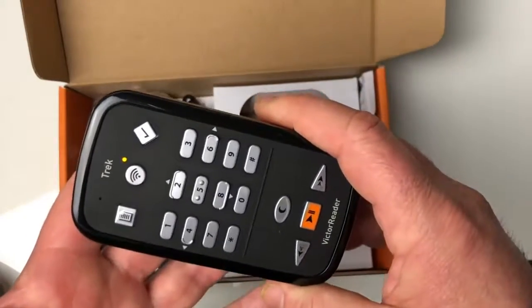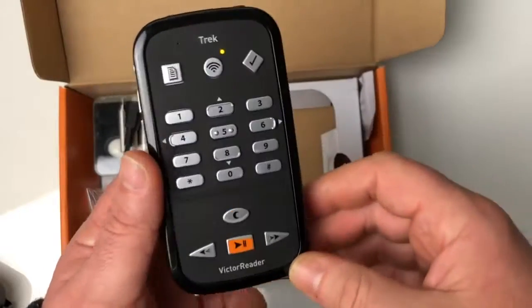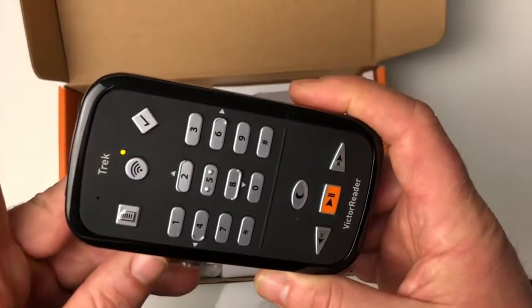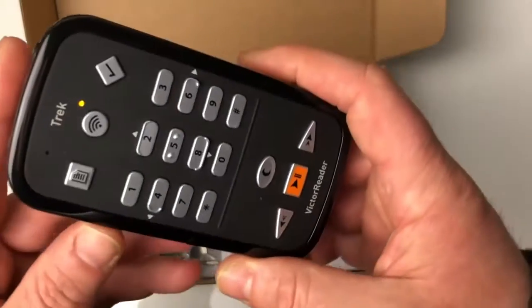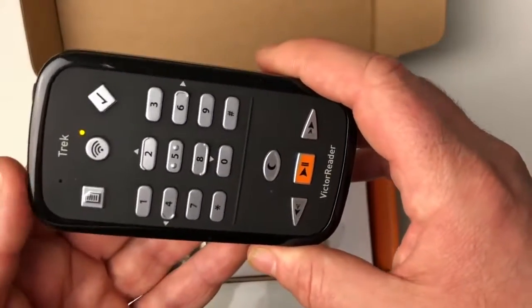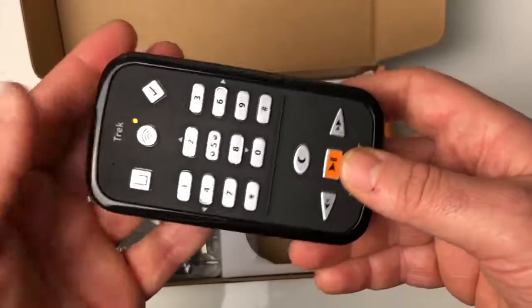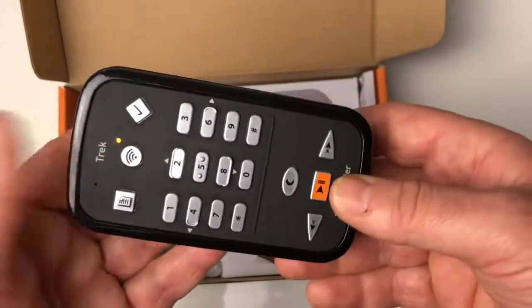L'appareil possède des nouveautés en interne par rapport au Victor Reader Stream : on dispose du Bluetooth. Vous allez pouvoir directement connecter l'appareil à un haut-parleur Bluetooth ou un casque Bluetooth, ce qui veut dire que lors d'une marche à l'extérieur, on peut soit utiliser le volume extérieur — un peu plus fort que le haut-parleur intégré face aux bruits environnementaux de la ville — soit connecter en Bluetooth un petit ou gros haut-parleur dans votre sac. Le Bluetooth est vraiment un point fort de l'appareil. On a aussi le Wi-Fi pour les mises à jour, les radios web et les podcasts.